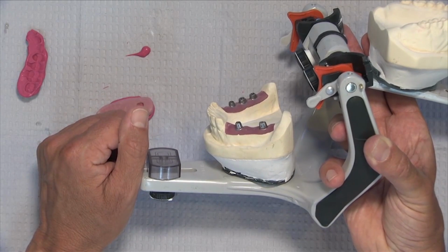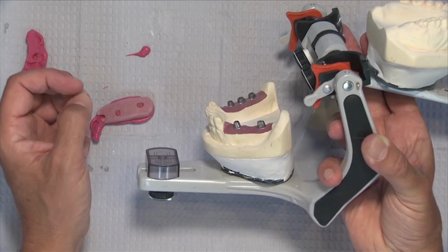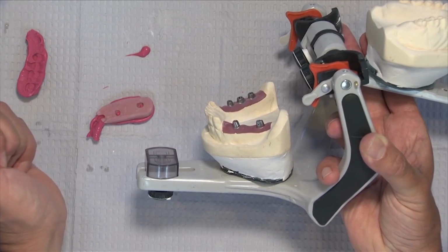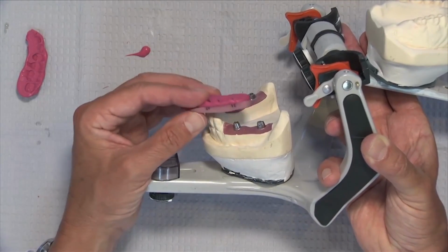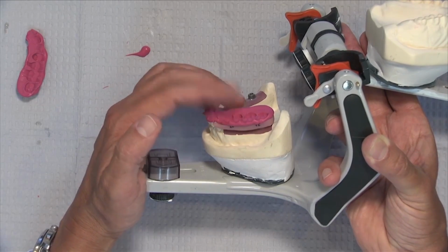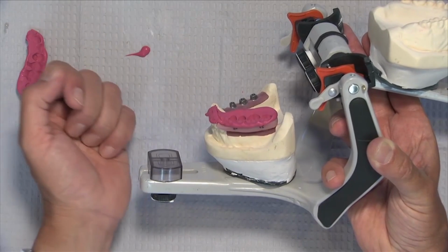That's really one of the reasons why I prefer to use the custom abutments rather than using a stock abutment and prepping it myself in the mouth and then trying to accurately communicate where those abutments are going to be to the laboratory. So I'm a big fan of the custom abutments, and now that we're able to use this positioning bite index to be able to get a very accurate bite back to the laboratory, we can really minimize any adjustments we might have to make at the seat appointment.